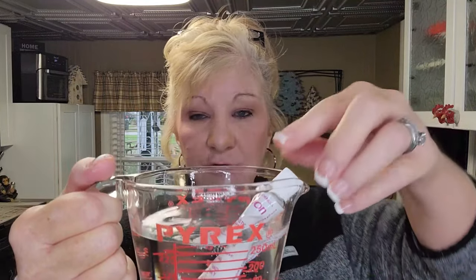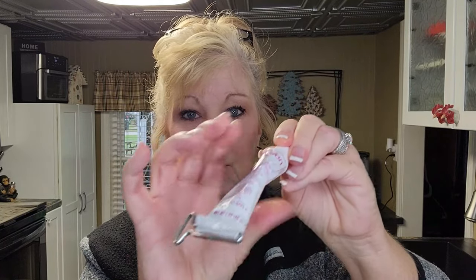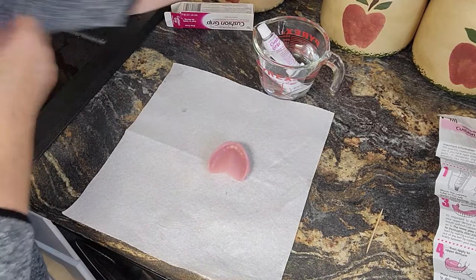When you do the cushion grip, first you put the key on the tube and squeeze because it's easier to twist and come out. Then put it in warm water for five minutes — hot warm water. The goal is to loosen up the cushion grip so it's pliable. Your denture should be dry — clean and dry.